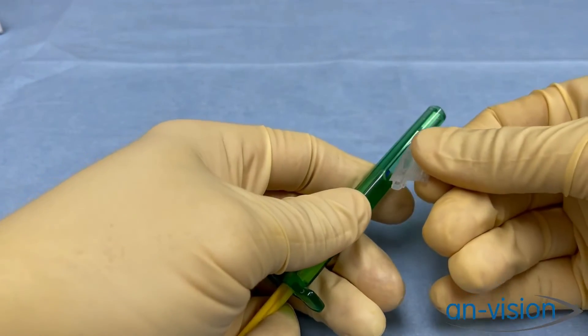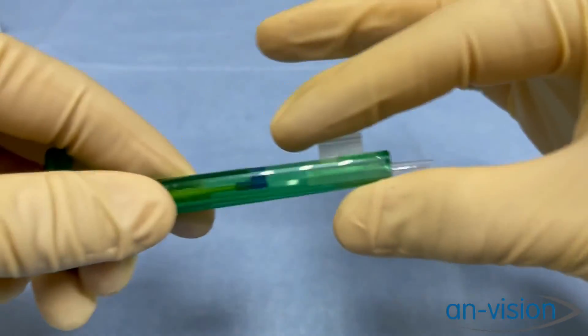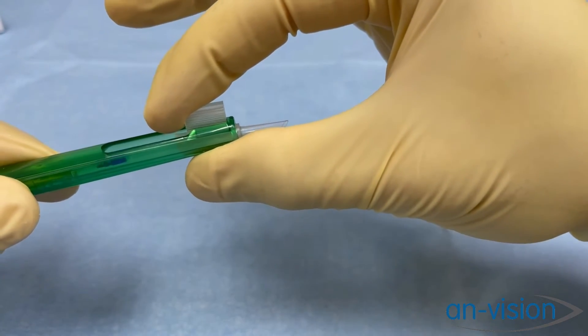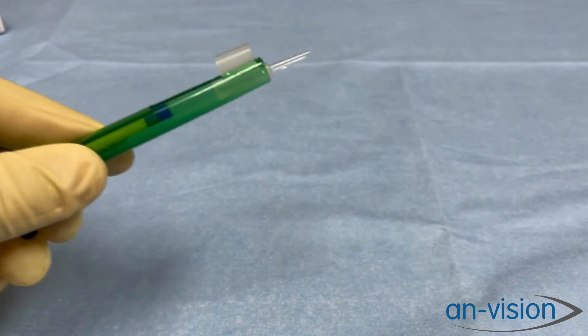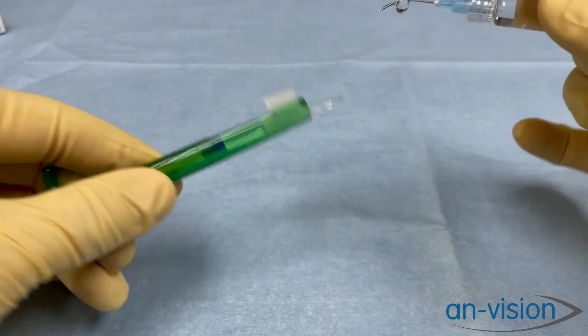Then we take the injector, insert the head by sliding it in, and then we want to make sure we push it all the way forward. We are going to fill the front and back end with viscoelastic.